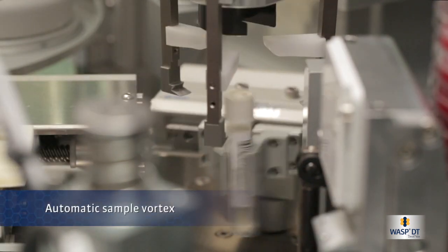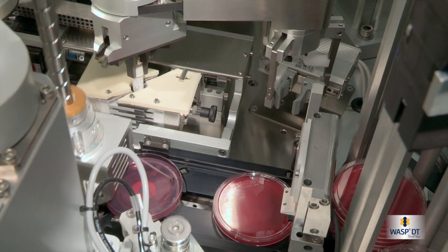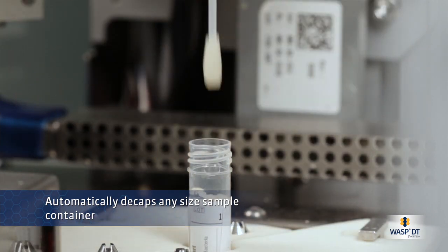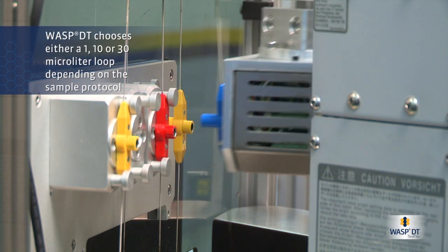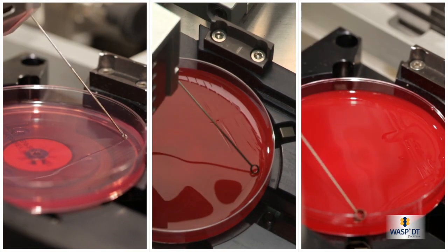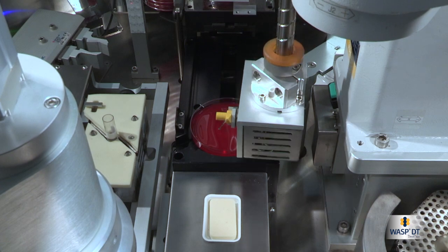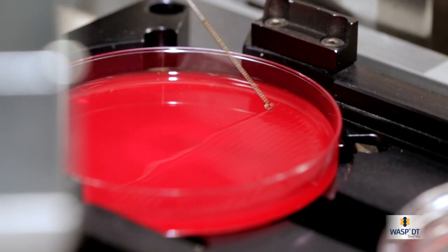The sample is vortexed and sent to the decapper. WASP chooses from either a 1, 10, or 30 microliter loop, depending on the sample protocol. The use of traditional reusable metal loops lowers the cost of disposables and allows more flexible sample management, such as a 1 microliter inoculum for samples like urine.